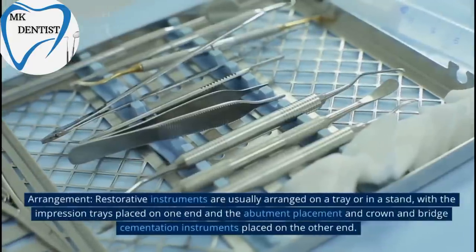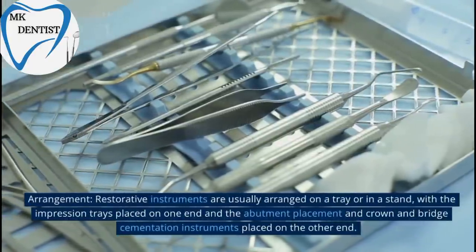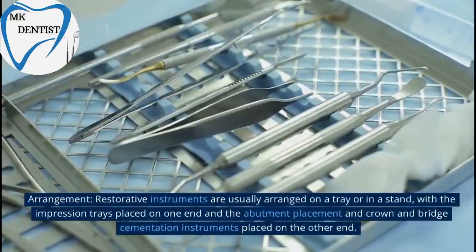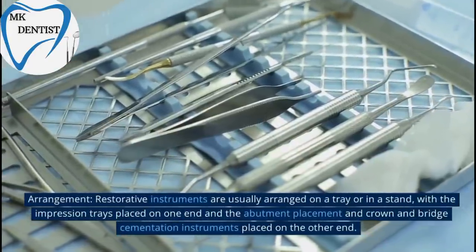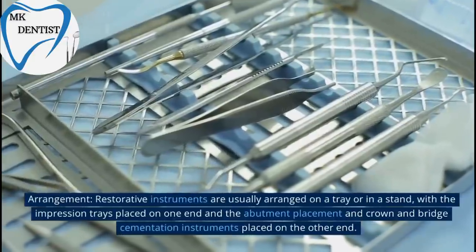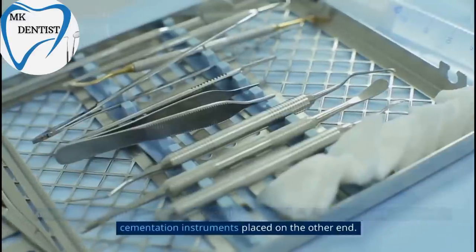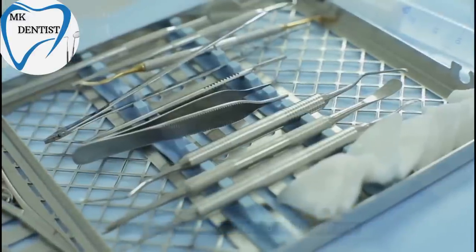Arrangement. Restorative Instruments are usually arranged on a tray or in a stand, with the impression trays placed on one end and the abutment placement and crown and bridge cementation instruments placed on the other end.